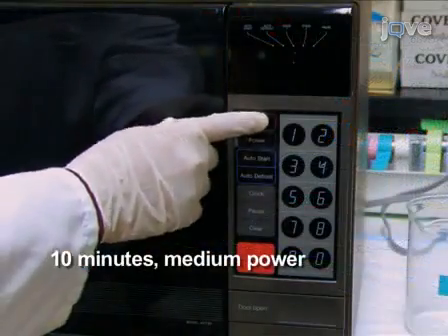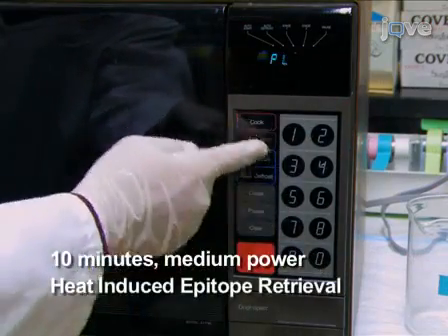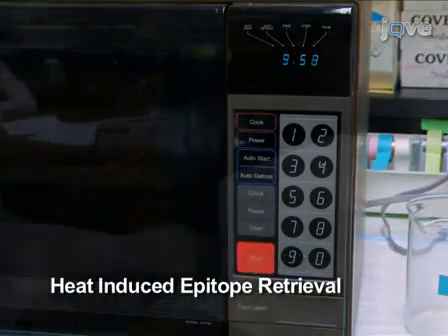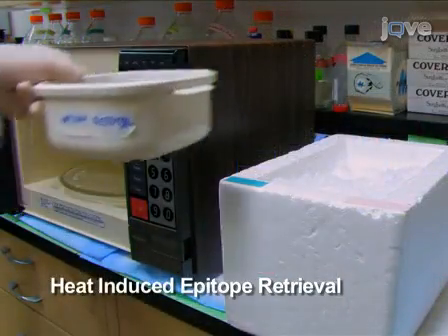This is followed by 10 minutes on the medium setting. This step, which is called heat-induced epitope retrieval, breaks the crosslinks formed in the tissue sample during formalin fixation and enables the antibody to recognize the protein of interest.